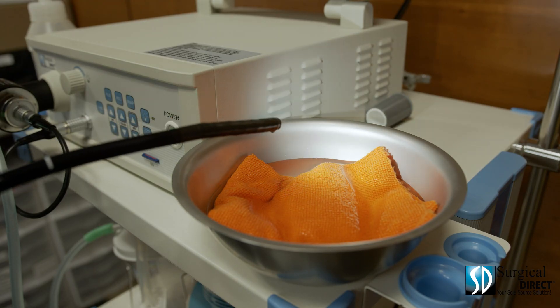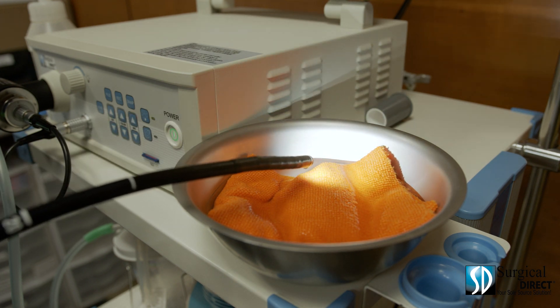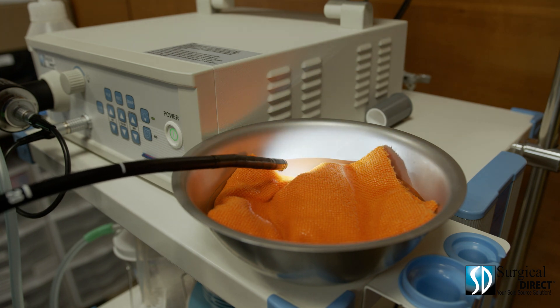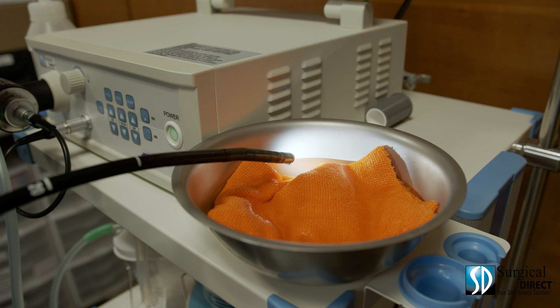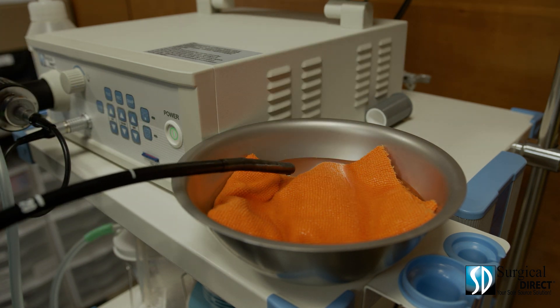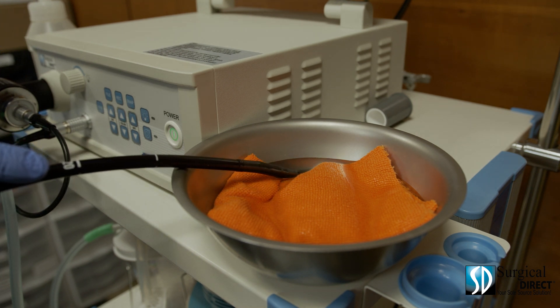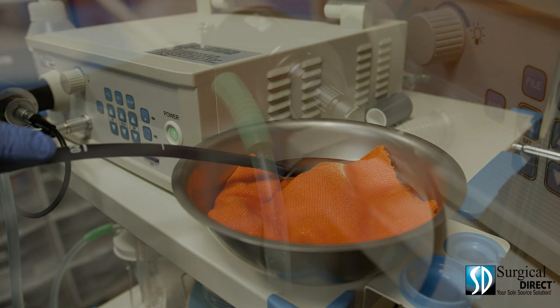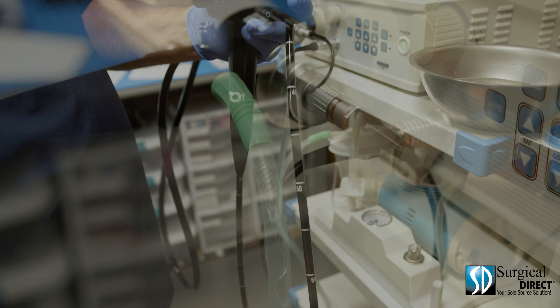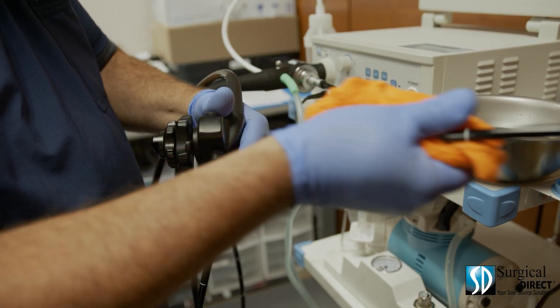At the end of every procedure, it's important to thoroughly clean each endoscope. The channels inside the scope have been exposed to proteins, which can stick to the scope if not properly cleaned immediately after the procedure. Start by turning off the light, then inserting the distal end of the scope into your enzymatic solution. Depress the suction button and suction through all of the enzymatic cleaner. Then use your soft rag to gently clean all external surfaces of the scope.